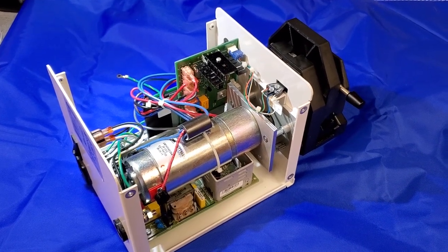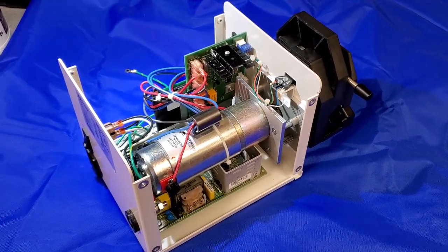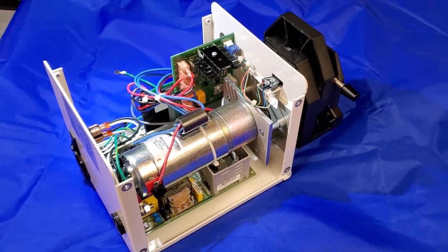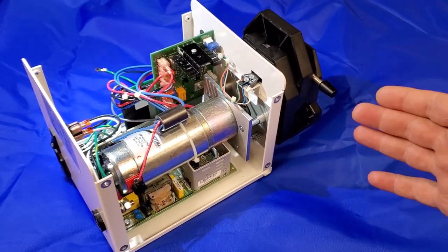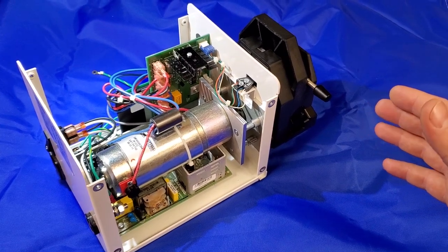Hi everyone, welcome back. I just wanted to do a follow-up video to my motors and medical equipment video because I ran into this very interesting little specimen right here. This is just a regular irrigation pump, or so I thought.